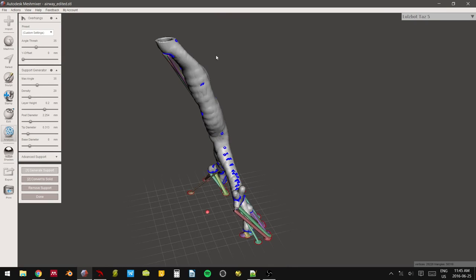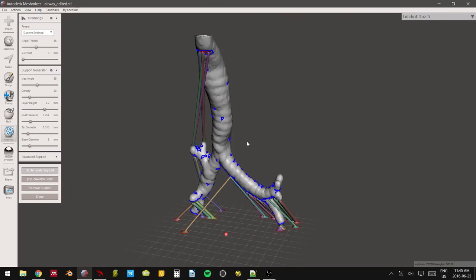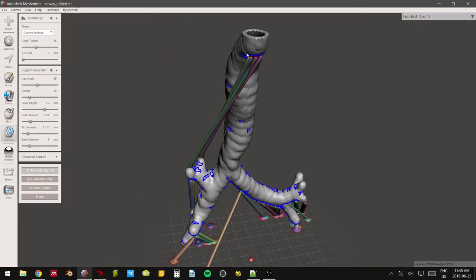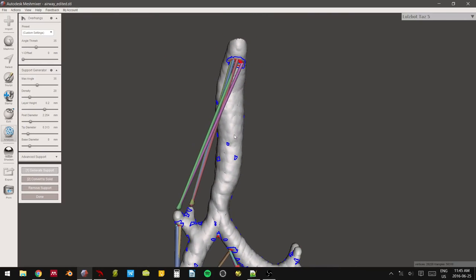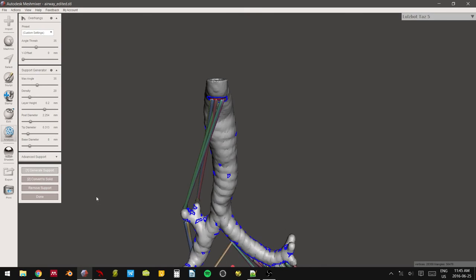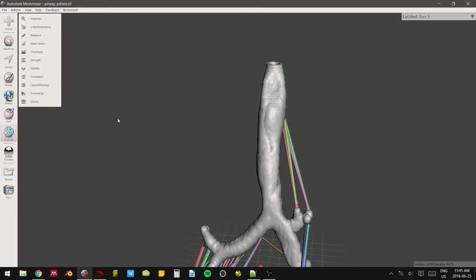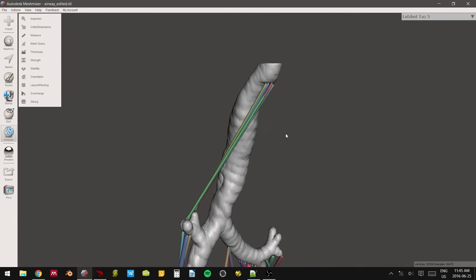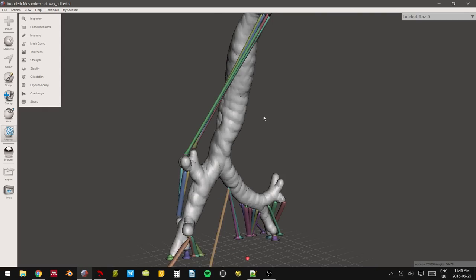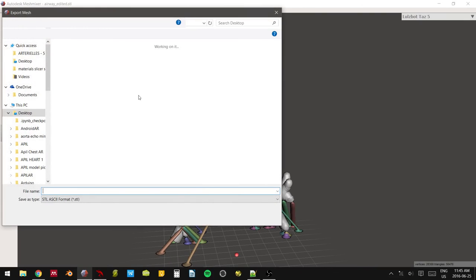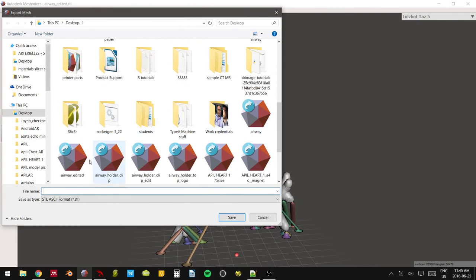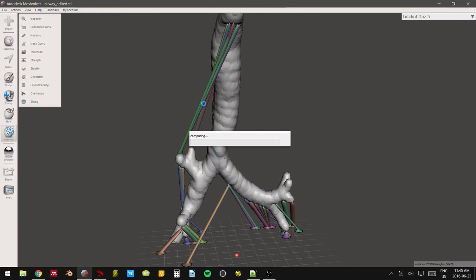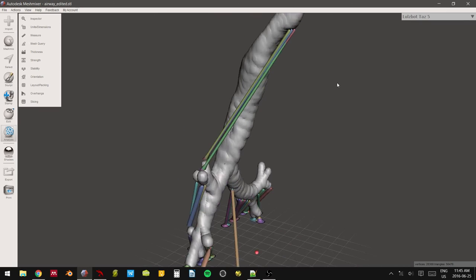One of the questions that I get a lot with this is why do I print this vertically? Why don't I just tip this thing along the y-axis or x-axis so that you print it more horizontally and have fewer vertical layers? And the answer to that is it doesn't look as good. I generally try and print vertically. Whoa, that is sketchy. Oh well. So now once we're happy, we export this out. And then we prep for print.